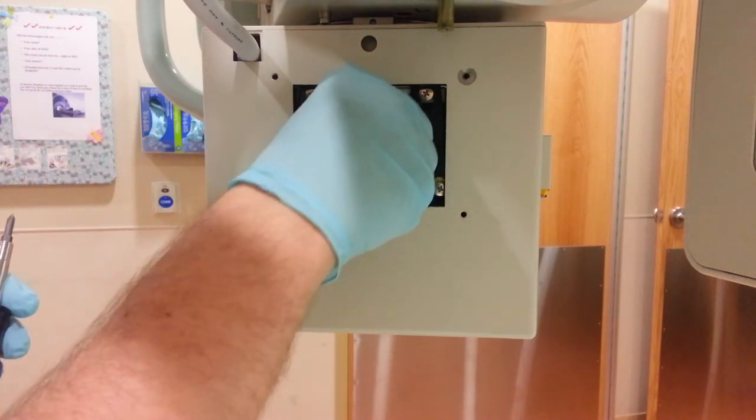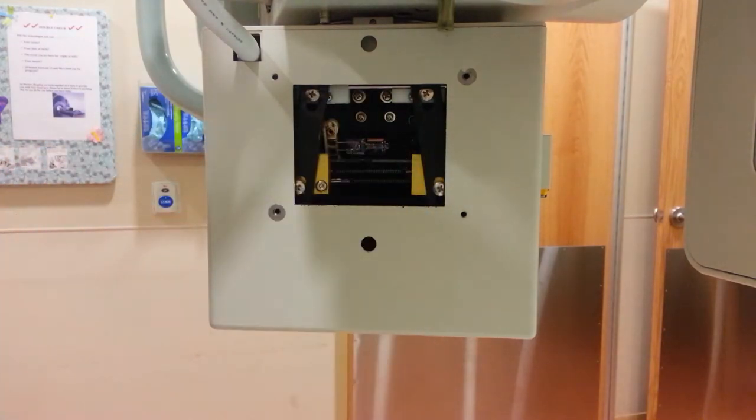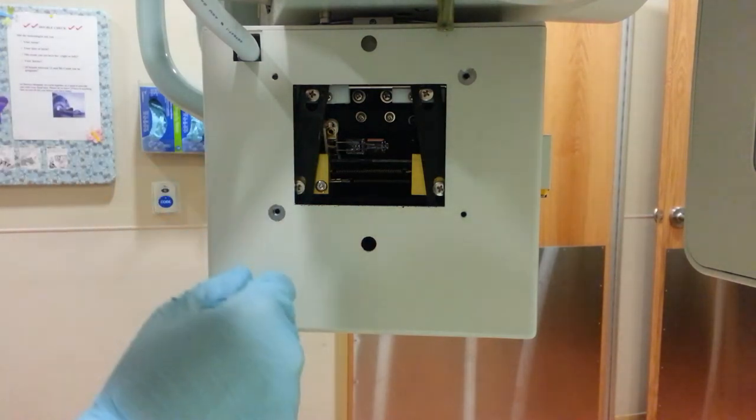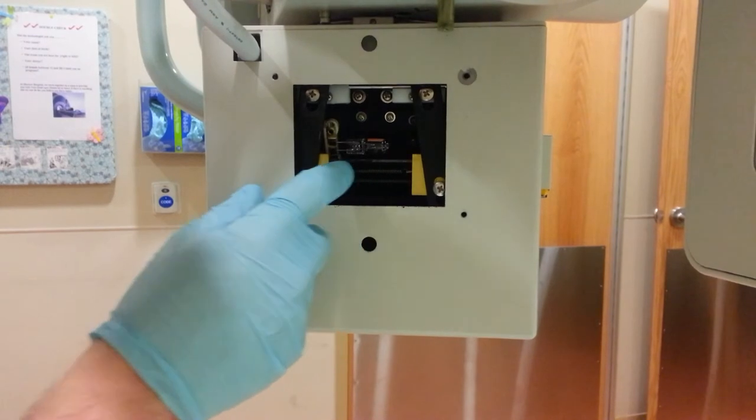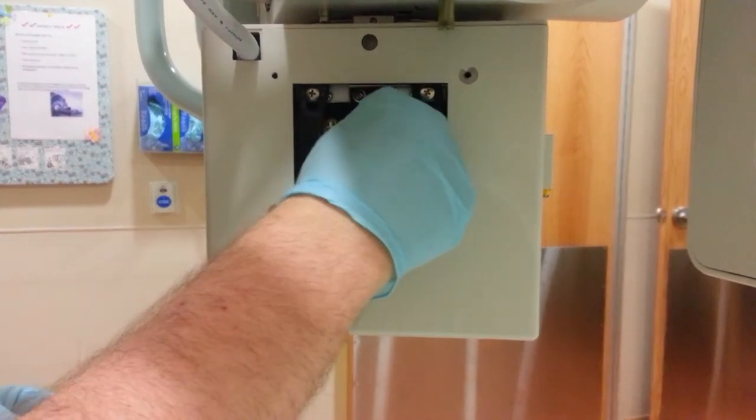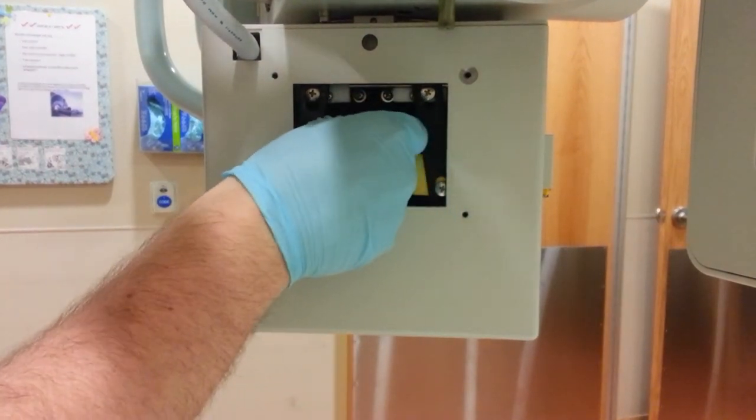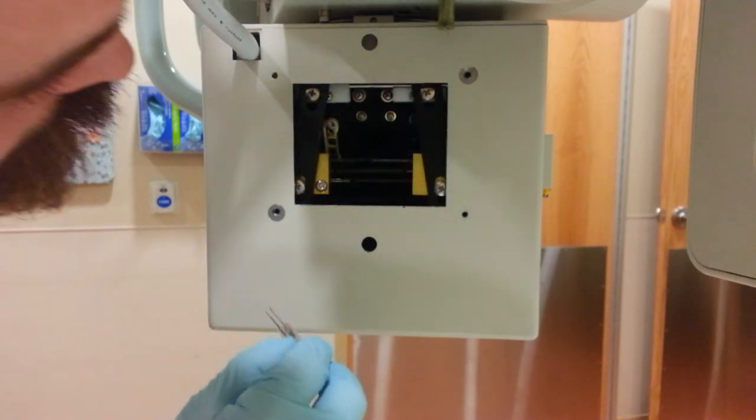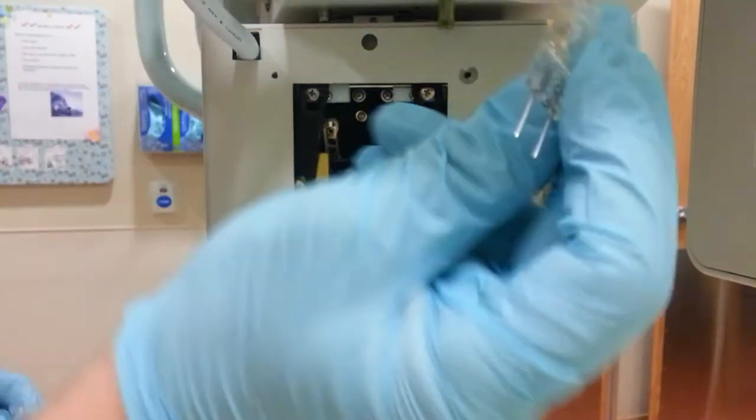And that little housing will kind of slide down. Like so. Your old burned out light bulb is right in here. That should just come out here. Right out here.